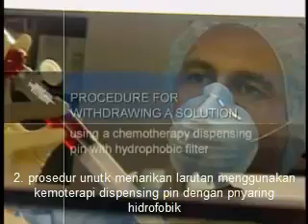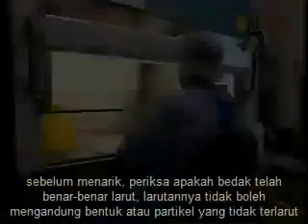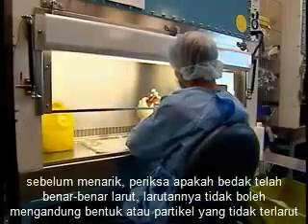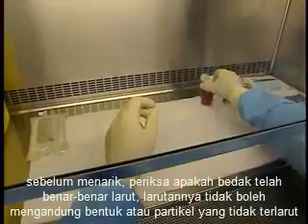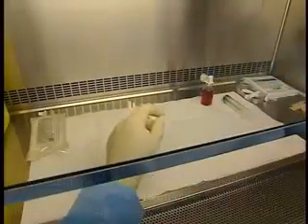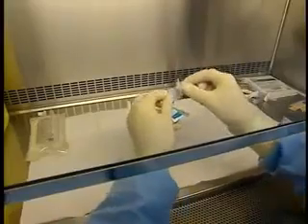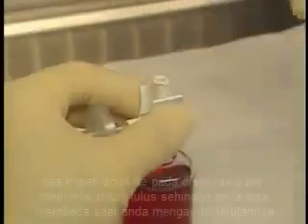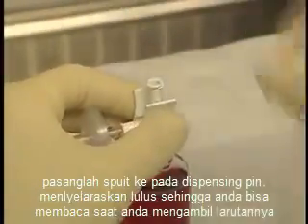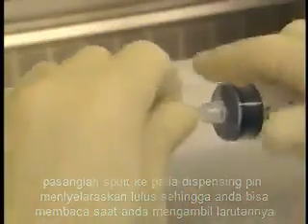Procedure for withdrawing a solution using a chemotherapy dispensing pin with hydrophobic filter. Before withdrawing, check that the powder has completely dissolved. The solution should not contain any foam or undissolved particles. Attach the syringe to the dispensing pin, aligning the graduations so you can read them as you withdraw the solution.